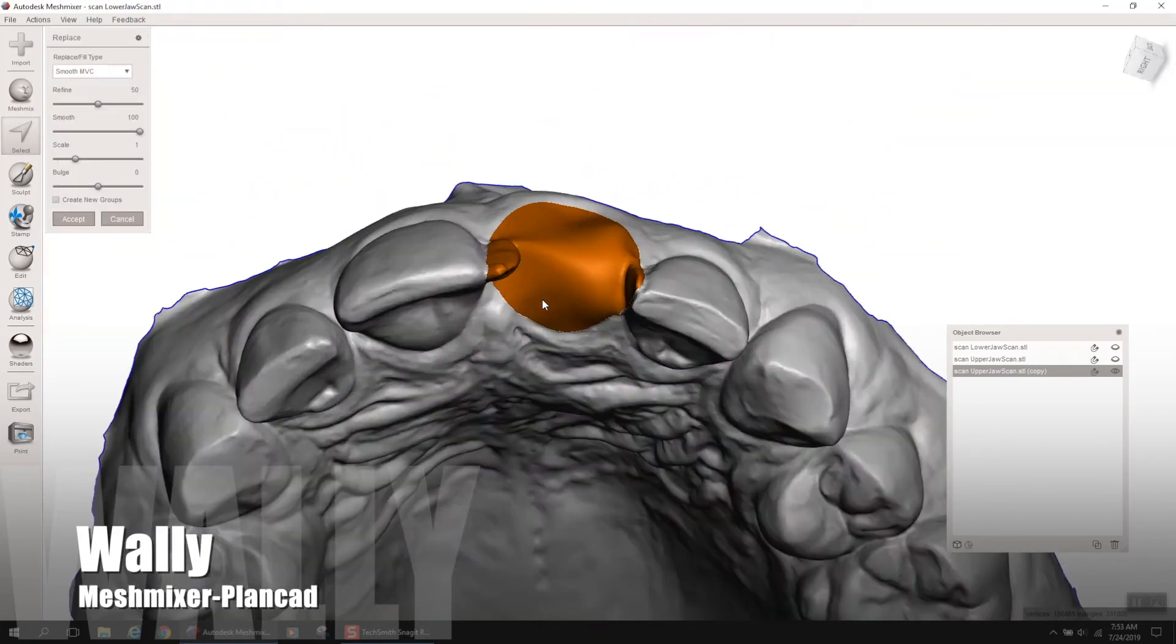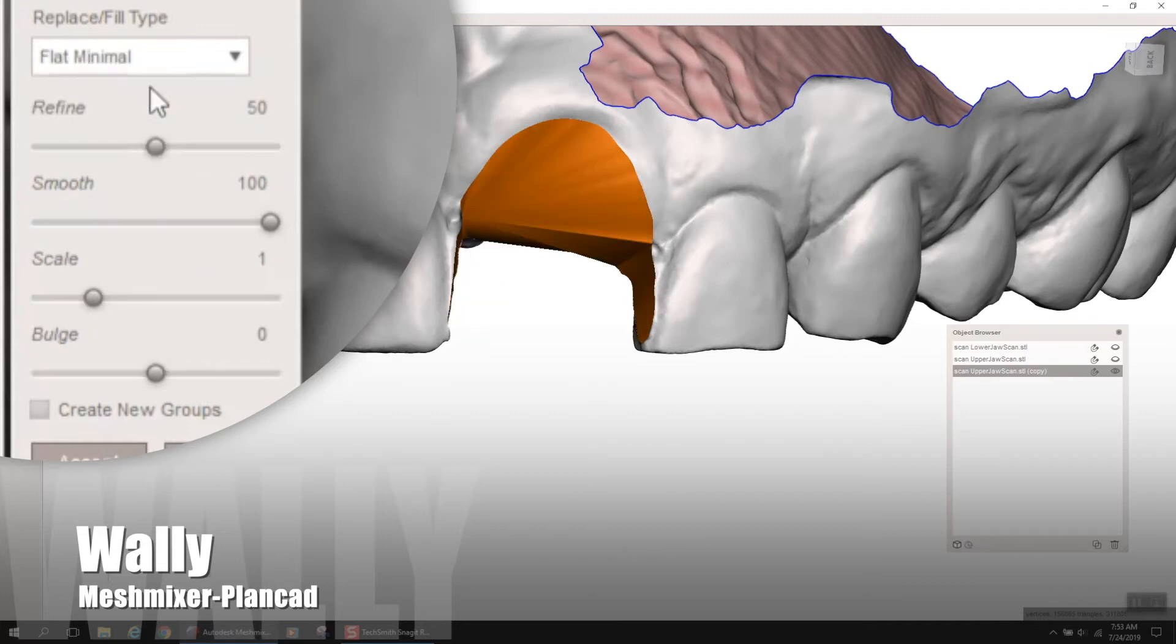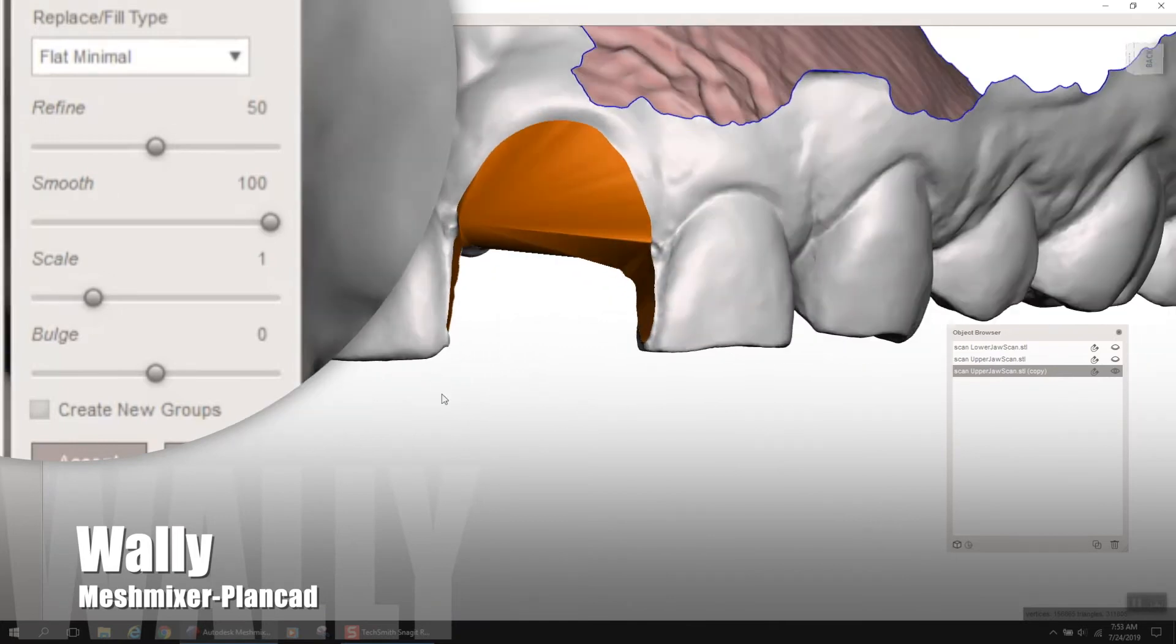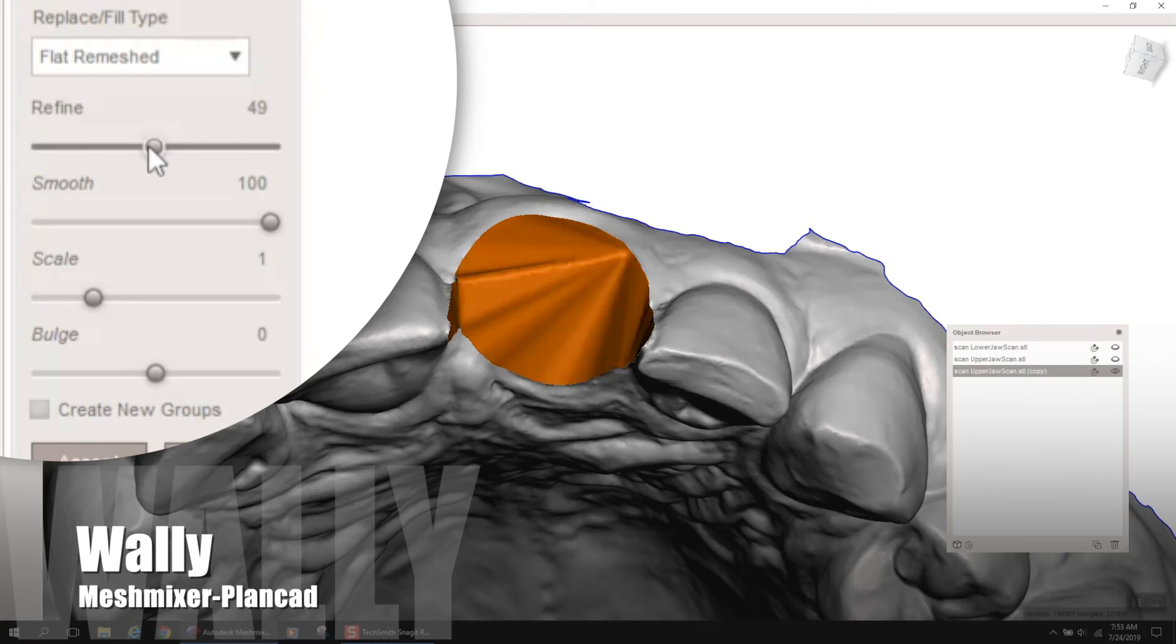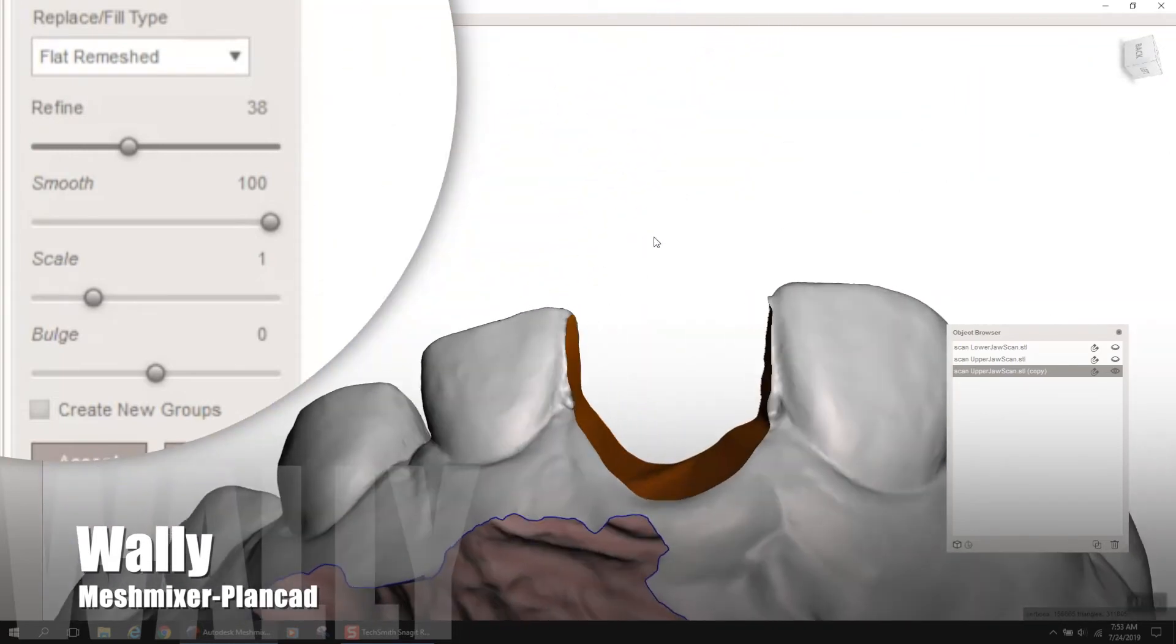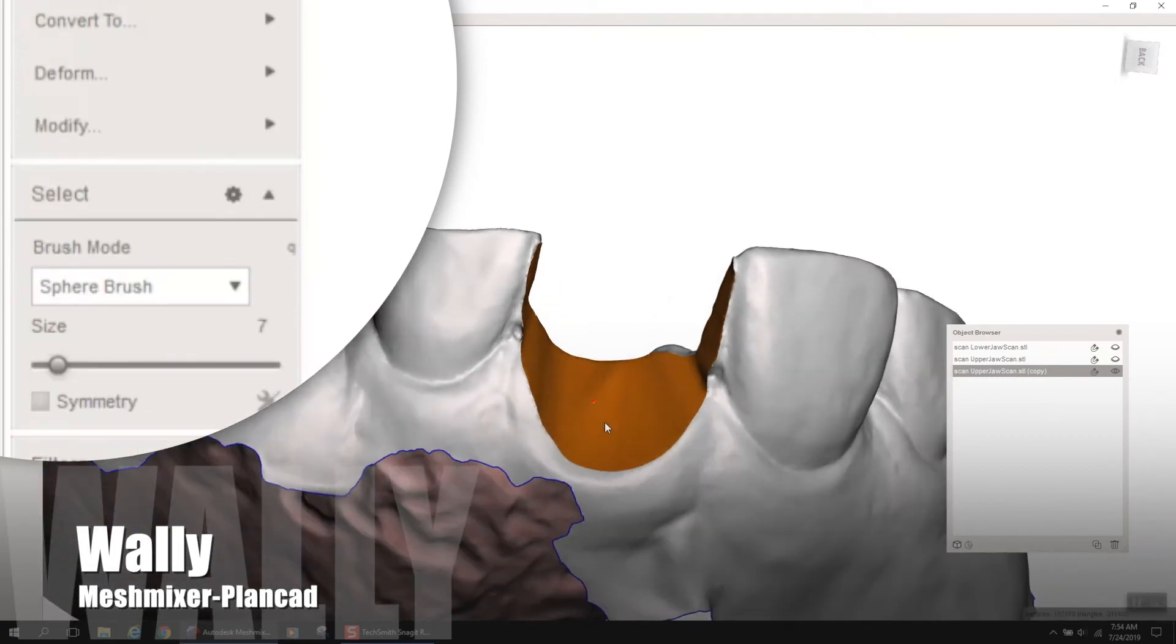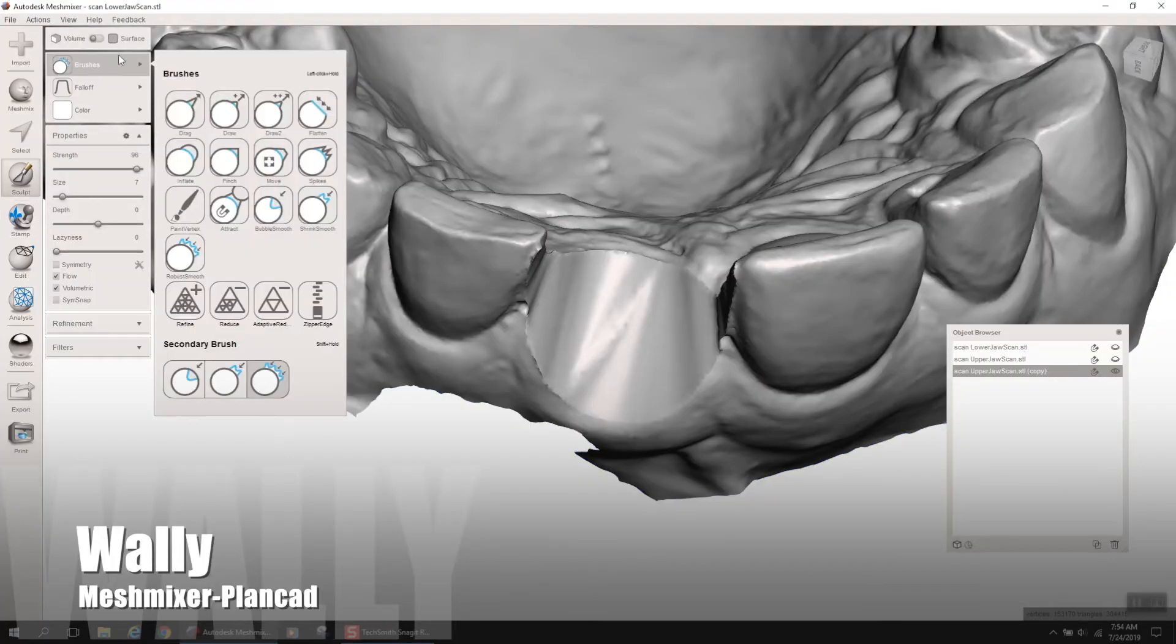So, now we need to erase and fill. There's a couple little things that you could do here when you erase. First is you could pick flat. I like flat minimal a lot of times when I'm going to do this. Usually, it's pretty good, and then you could go back with bubble smooth or inflate, but you could go flat re-meshed. And sometimes, if you're lucky and you refine that re-mesh, you could get it to where everything lines up where it's kind of a perfect extraction socket. So, here, once again, I went flat re-meshed, and I just hit the refine button and rotated that mesh around until it's pretty much perfect there.